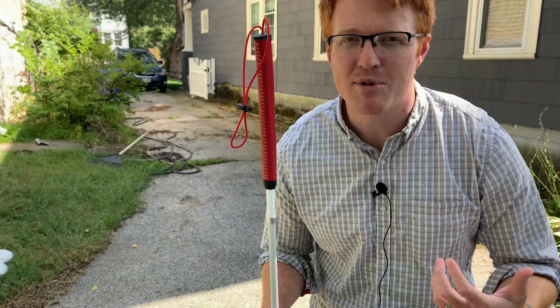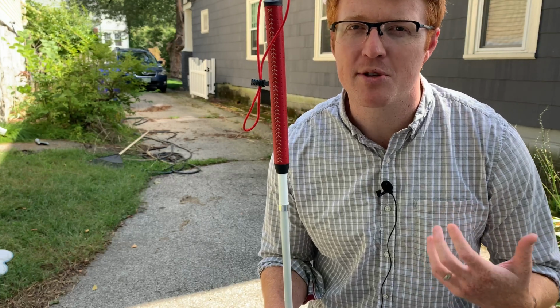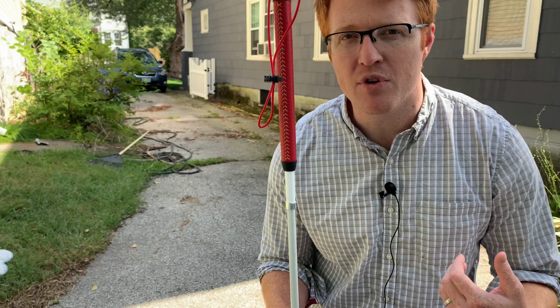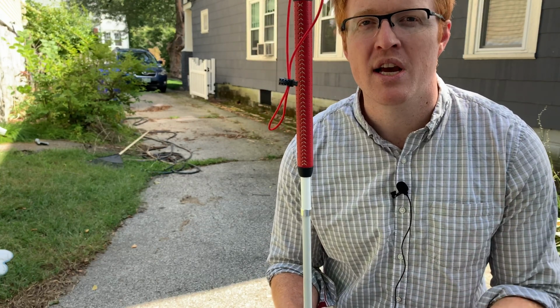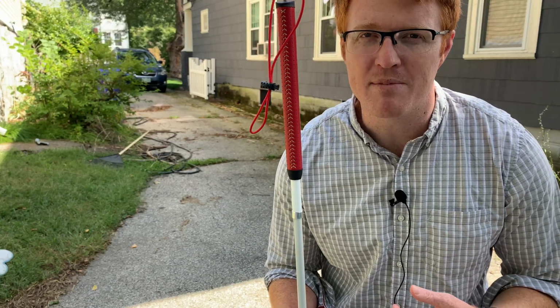So now I'm going to start my demonstration on the second limitation of the white cane, and that is sometimes the cane misses small objects or holes in the ground just because of the way the cane is sweeping. If you're using constant contact, even if you're moving it left and right, those small objects can be missed by the cane tip. And that'll make more sense right now when I do my demonstration.